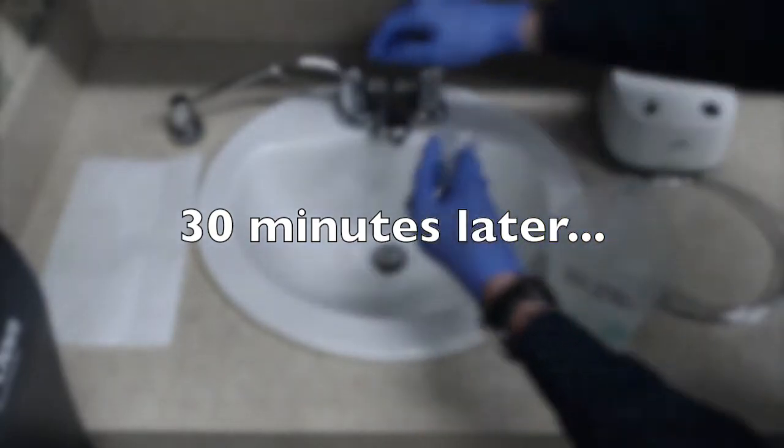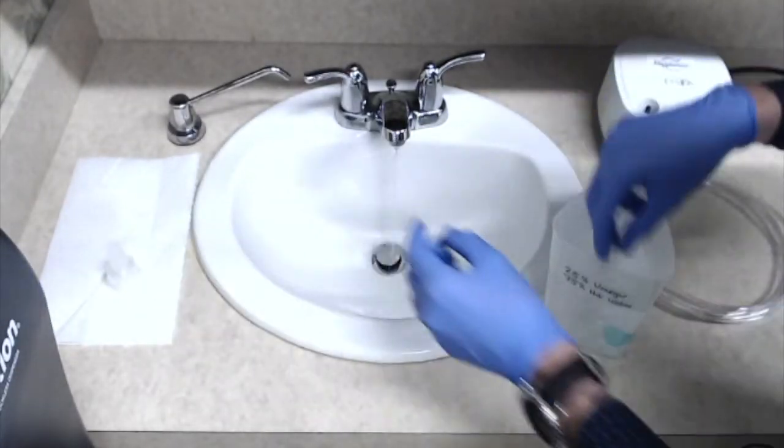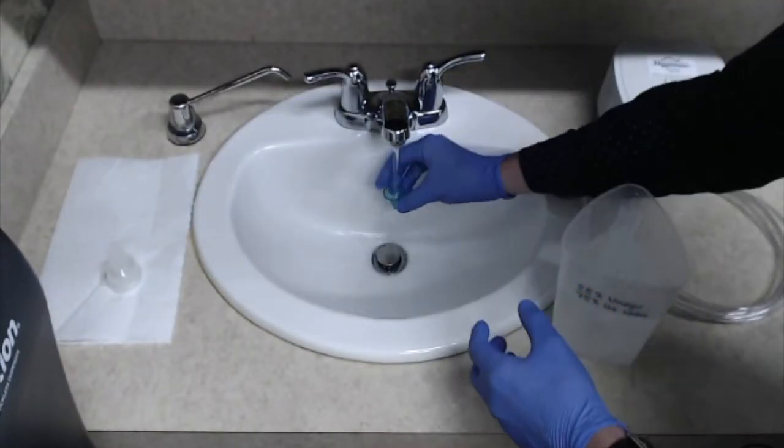You'll then want to rinse the parts under running water for at least 30 seconds, and then finally place on a paper towel that's clean to air dry.